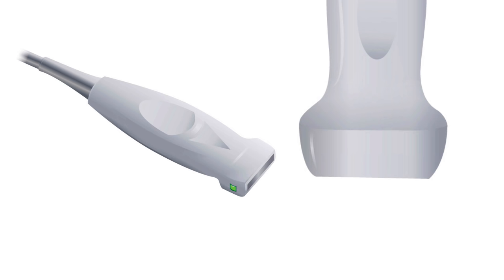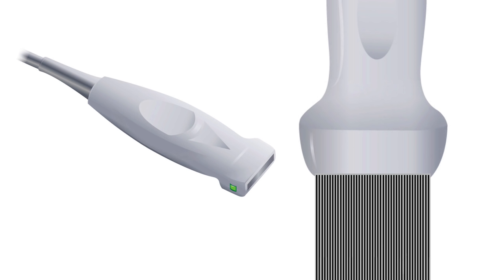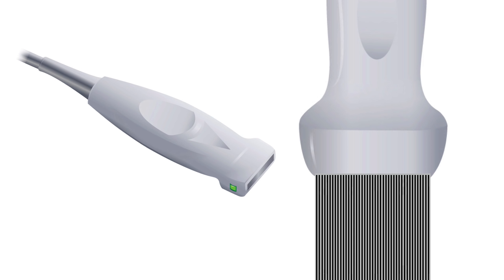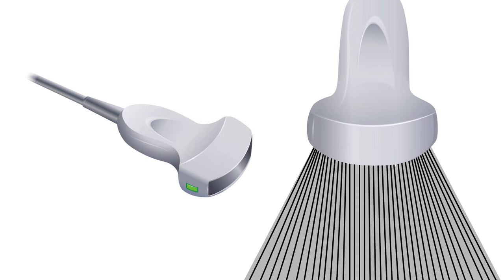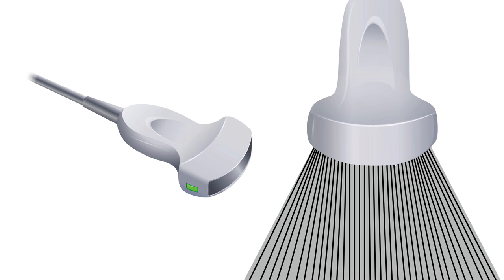There are multiple types of probes, and while they may look slightly different by manufacturer, the basic types are similar throughout. The linear array has a rectangular face and sends beams in a parallel fashion, giving a rectangular display. A curved array is a linear array that is slightly curved — the beam splays out giving a wider field in the deeper portion, while the sound beams are closer together near the probe.